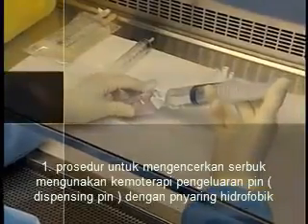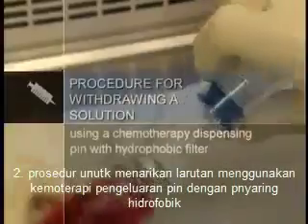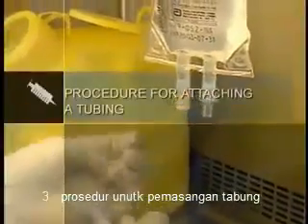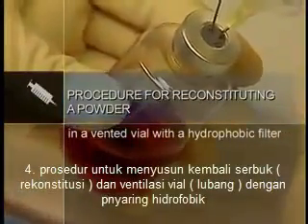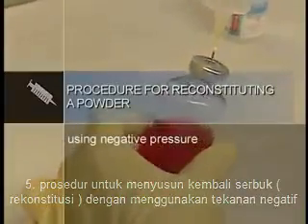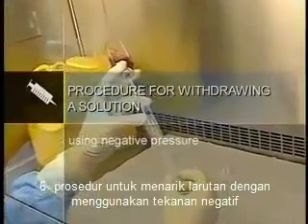Procedure for diluting a powder using a chemotherapy dispensing pin with hydrophobic filter. Procedure for withdrawing a solution using a chemotherapy dispensing pin with hydrophobic filter. Procedure for attaching a tubing. Procedure for reconstituting a powder in a vented vial with a hydrophobic filter. Procedure for reconstituting a powder using negative pressure. Procedure for withdrawing a solution using negative pressure.